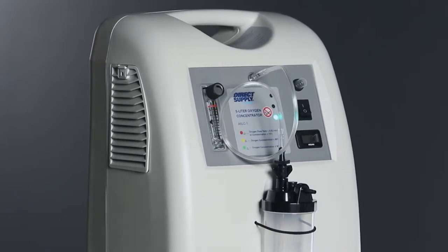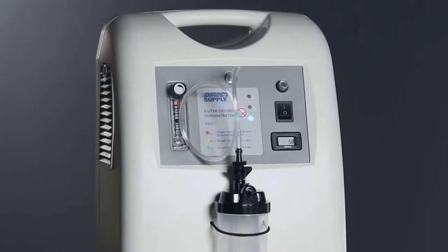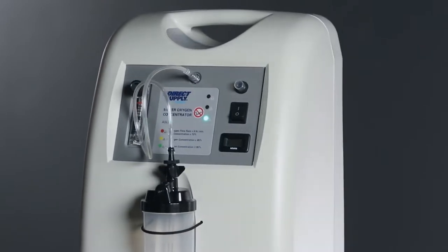Introducing the Attendant 5-Liter Oxygen Concentrator from Direct Supply. This video will walk you through how to set up and maintain your device.